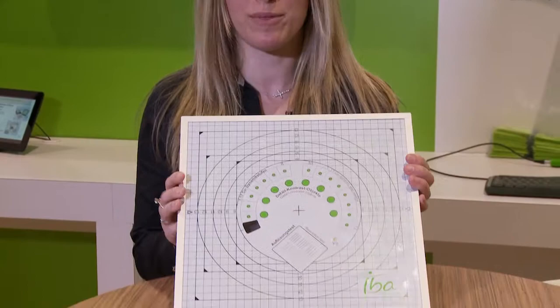The IBA digital analyzing solution comes in two parts. The first part is the all-in-one phantom, our Primus L.